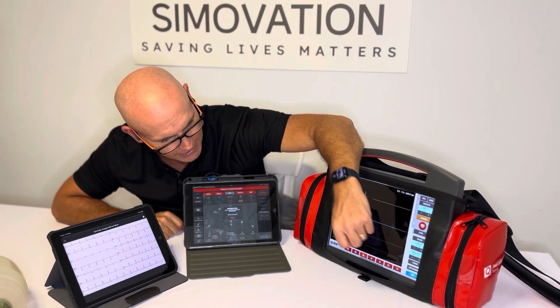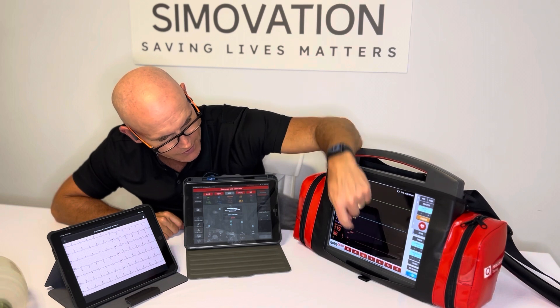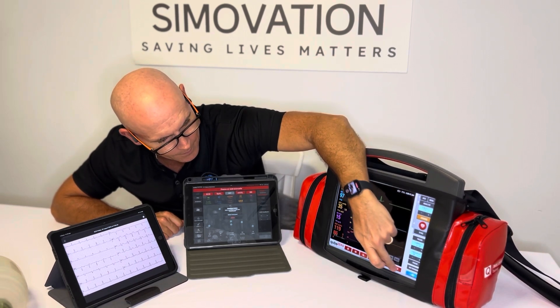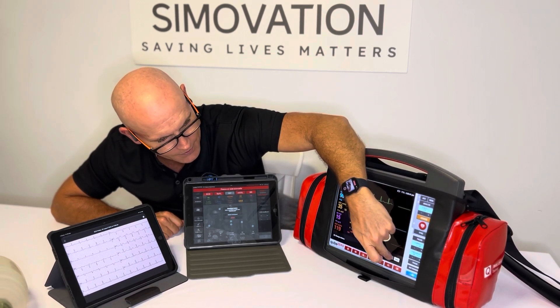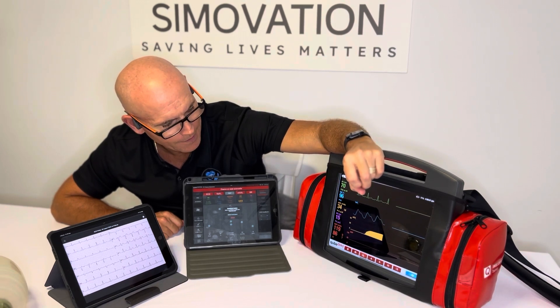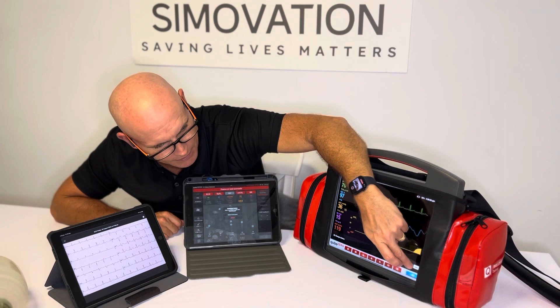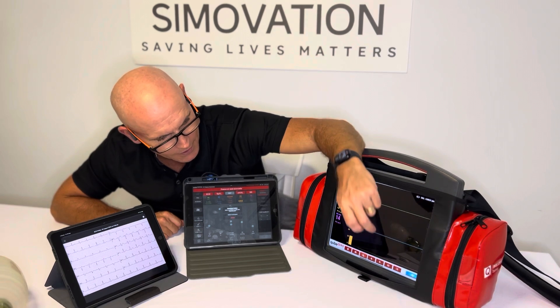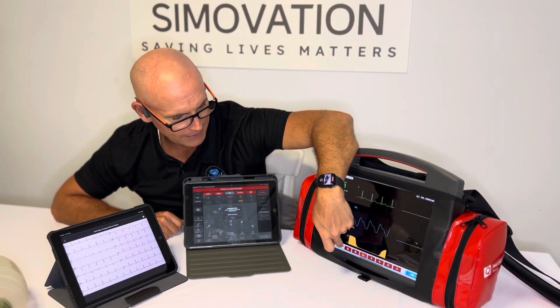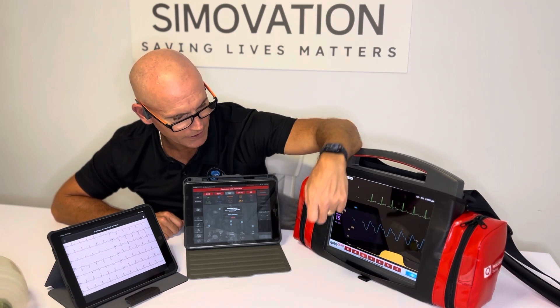Going back to home, here's a pre-clinical setting, here's your ICU monitor setting, and last but not least we have your general patient care monitor setting as well. Then I'll tap that to go back to the home screen.